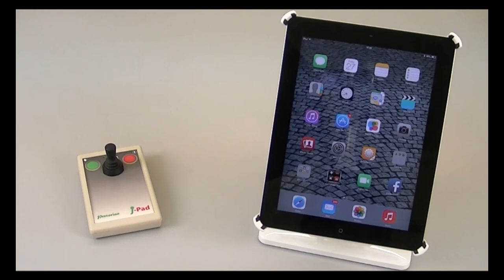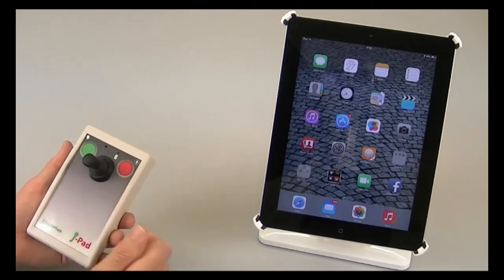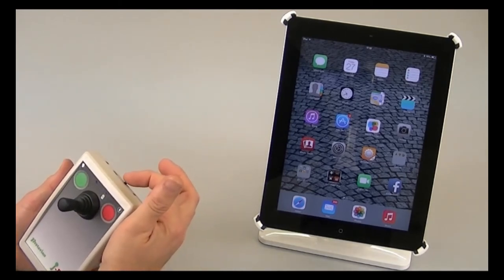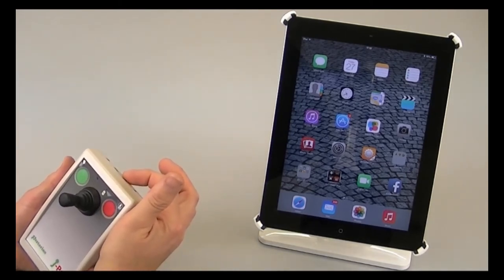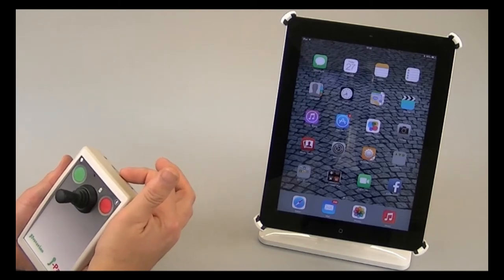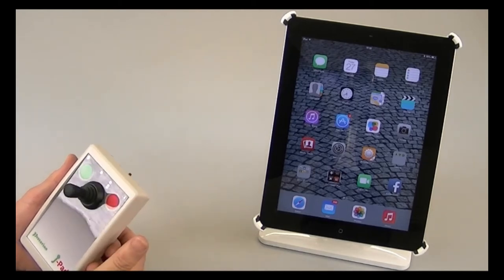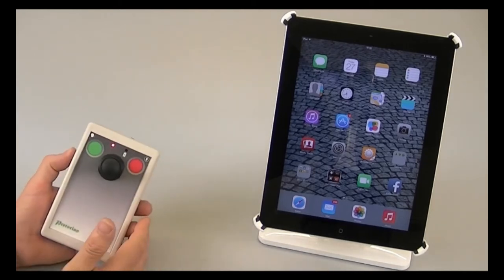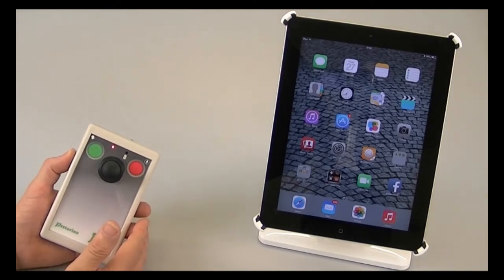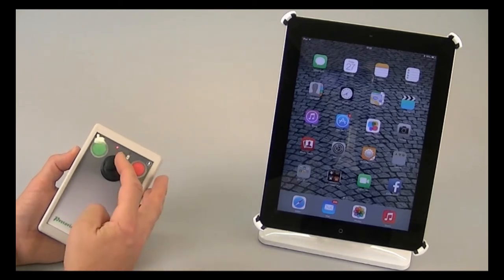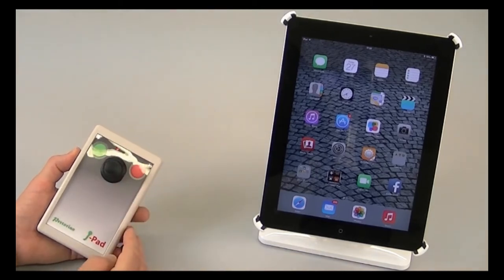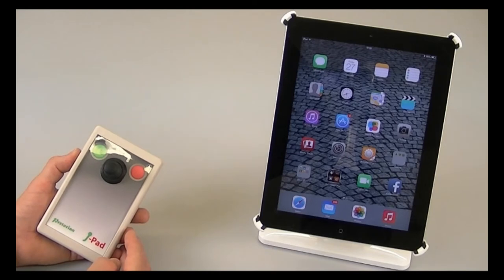First of all, we need to set the J pad to mode 5, which is the switch control mode. To do that, we put the unit into learn mode, which means I press and hold the feature button at the back for a couple of seconds until it emits a warbling beep. The red LED at the front lights to indicate that we are in learn mode. If I now move the joystick down, I get a single beep. That tells me I'm in mode 1.